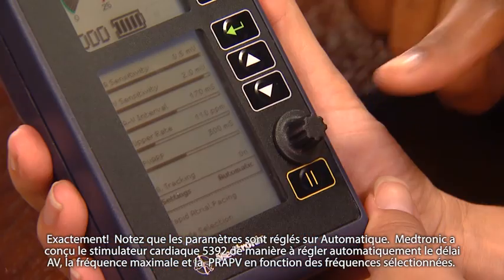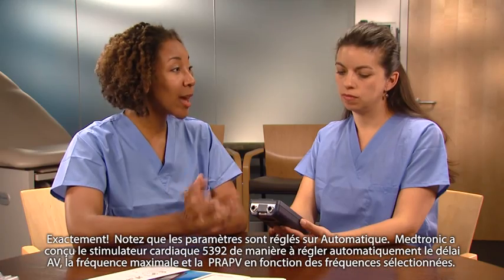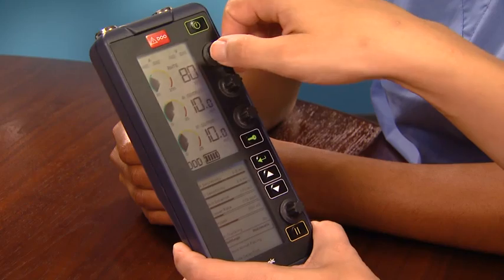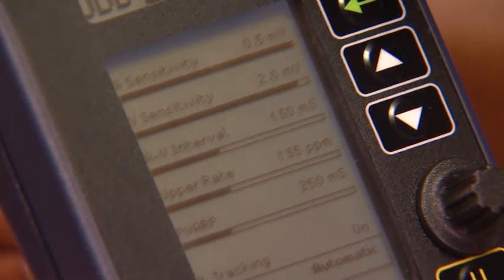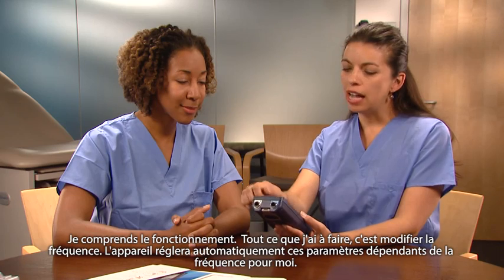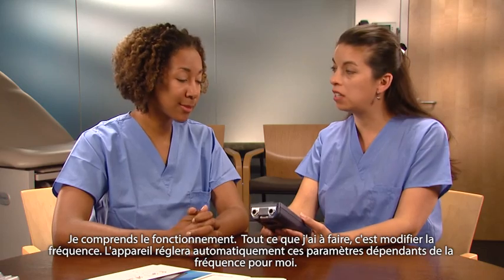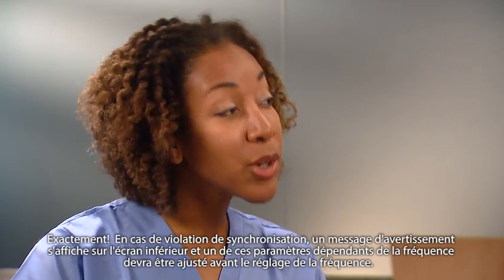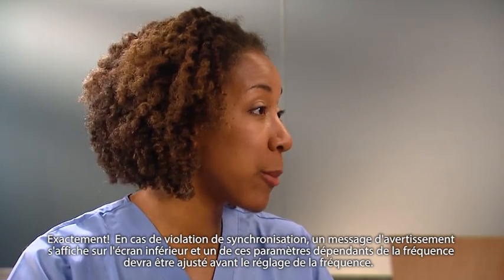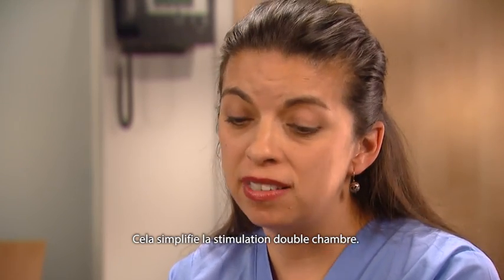So with the 5392, I can either fine tune a therapy or let the device do it automatically. That's right. Notice that settings is set to automatic. Medtronic designed the 5392 so that any change in the rate automatically adjusts the AV interval, upper rate, and PVARP. If there is a timing violation, a warning message appears in the lower screen and one of these rate-dependent parameters will need to be adjusted before adjusting the rate. This makes dual chamber pacing very easy.